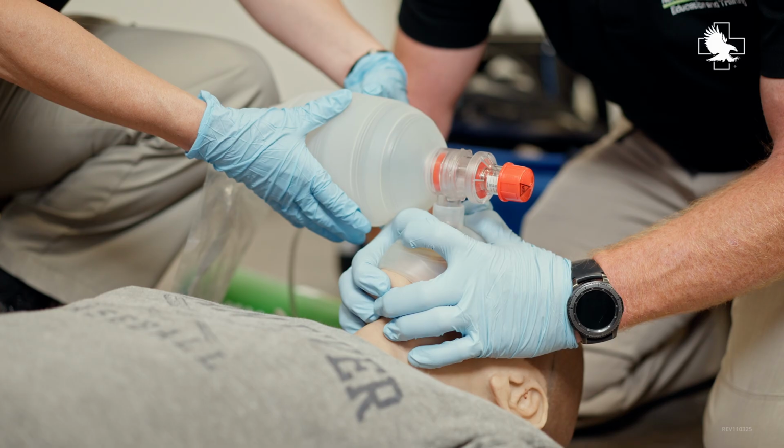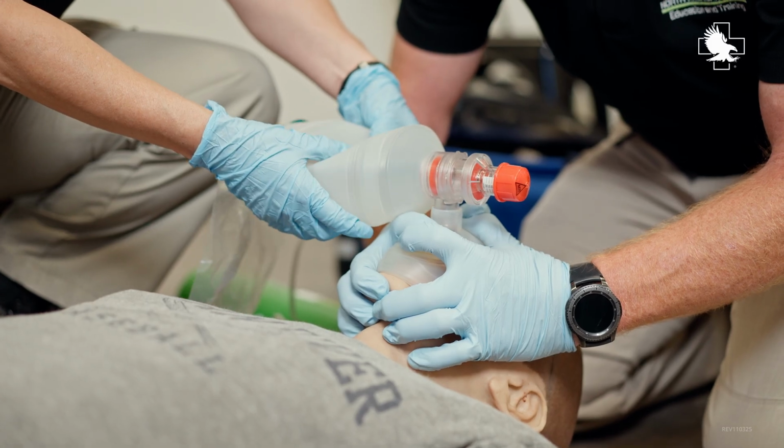Today I'm going to be going over some ventilator tips for people that either are not familiar anymore or don't often use ventilators. There's a lot of troubleshooting tips and tricks for your patient if they start getting hypoxic when they're on the ventilator.